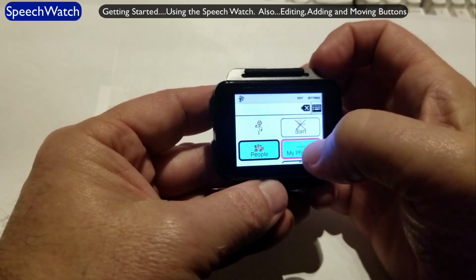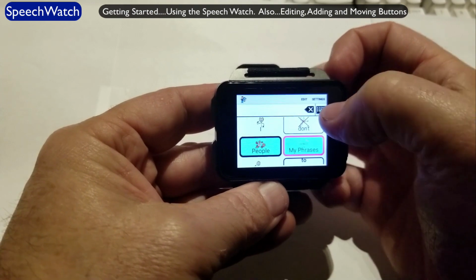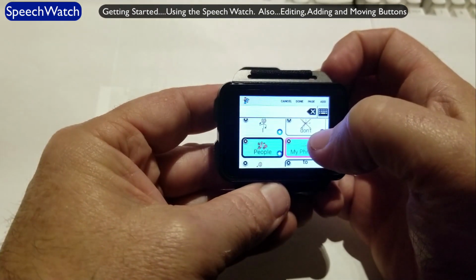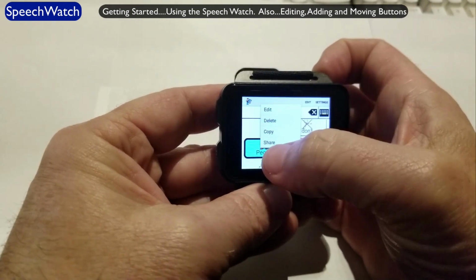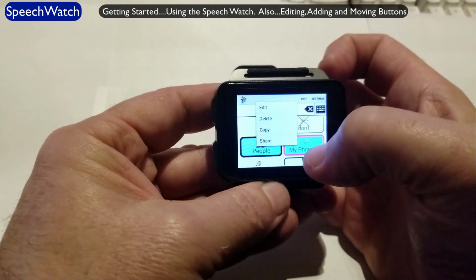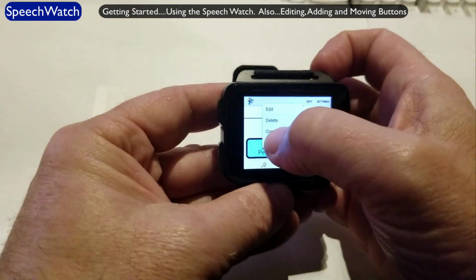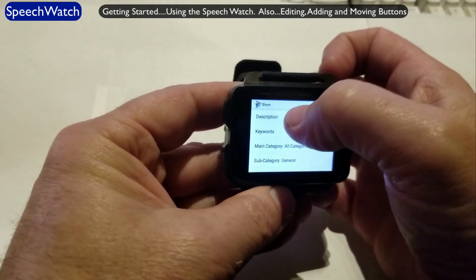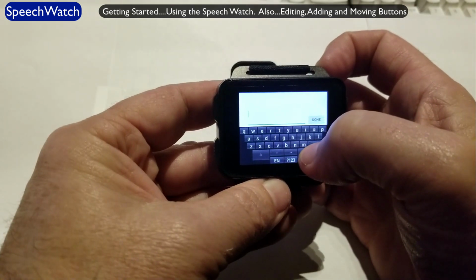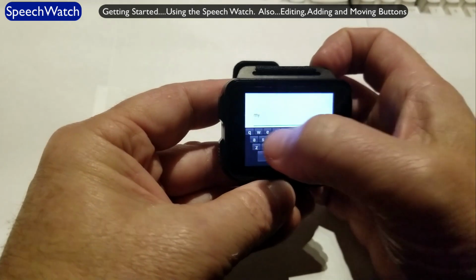If I created this button here called People, and it was very cool and I wanted to share with others, all I would do is hit Edit, touch on the button. See, now we have an option called Share. That wasn't showing up before. Before it was just Edit, Delete, Copy. Because I'm logged into the Talk Tablet cloud server, if I hit Share, I can give it a description. And I'll call it My Share.